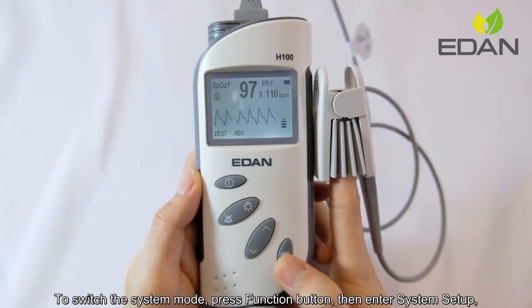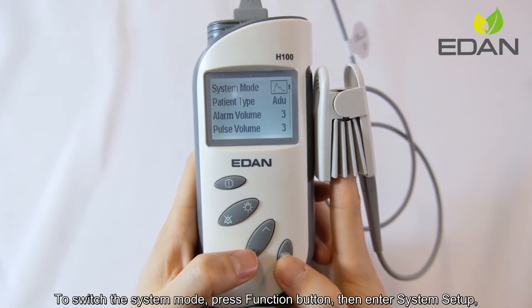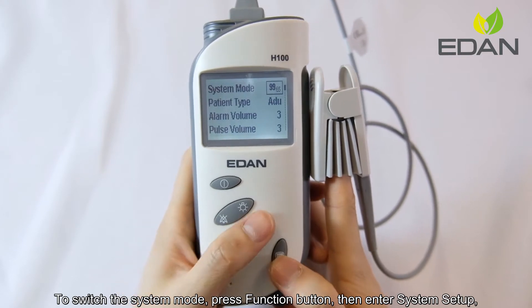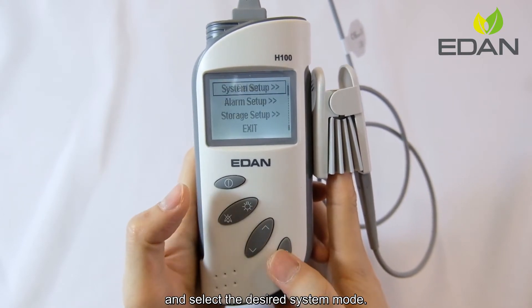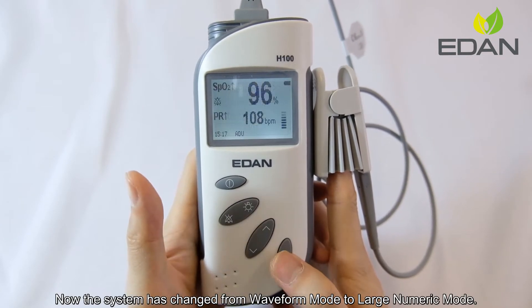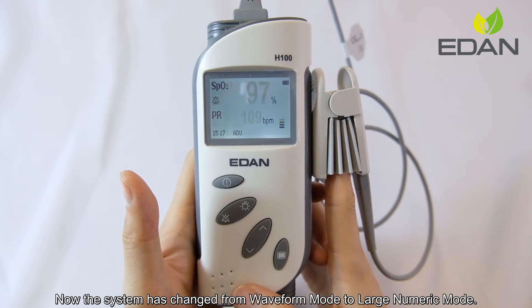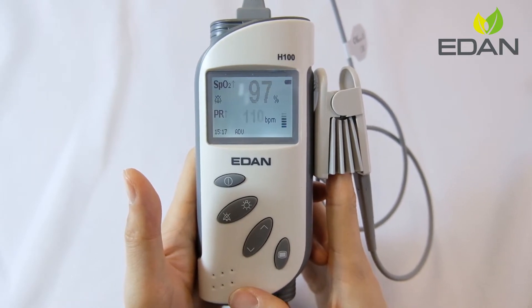To switch the system mode, press the function button, then enter the system setup, and select the desired system mode. Now the system has changed from waveform mode to large numeric mode.